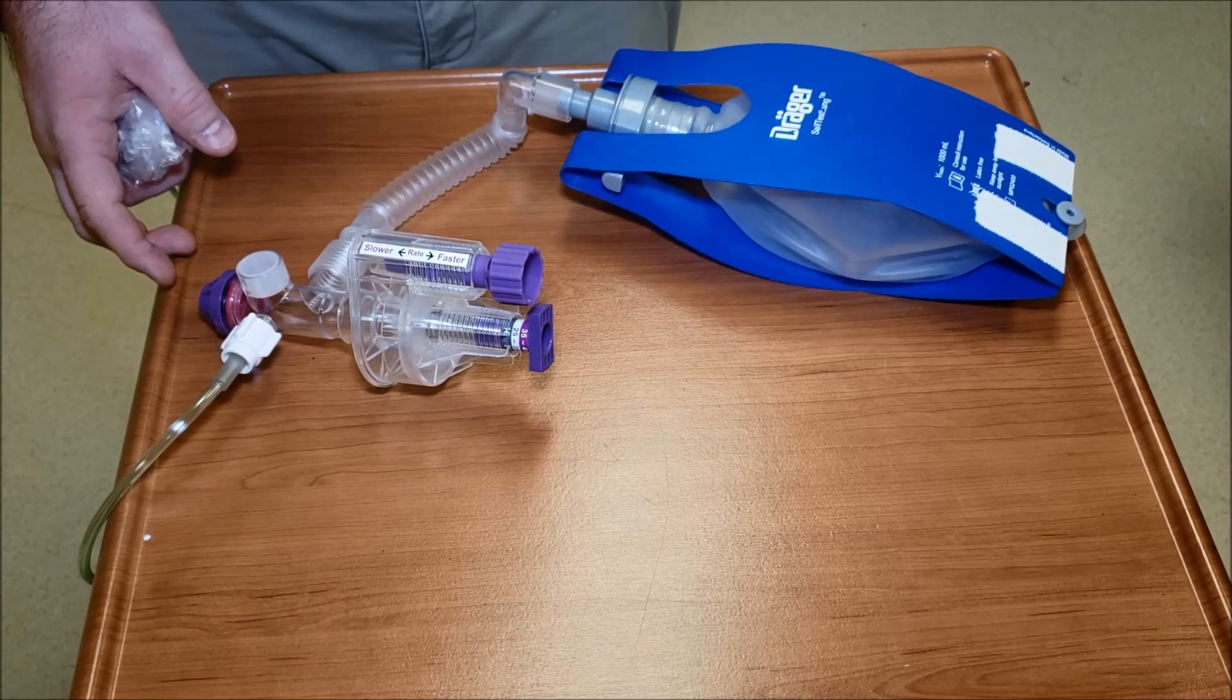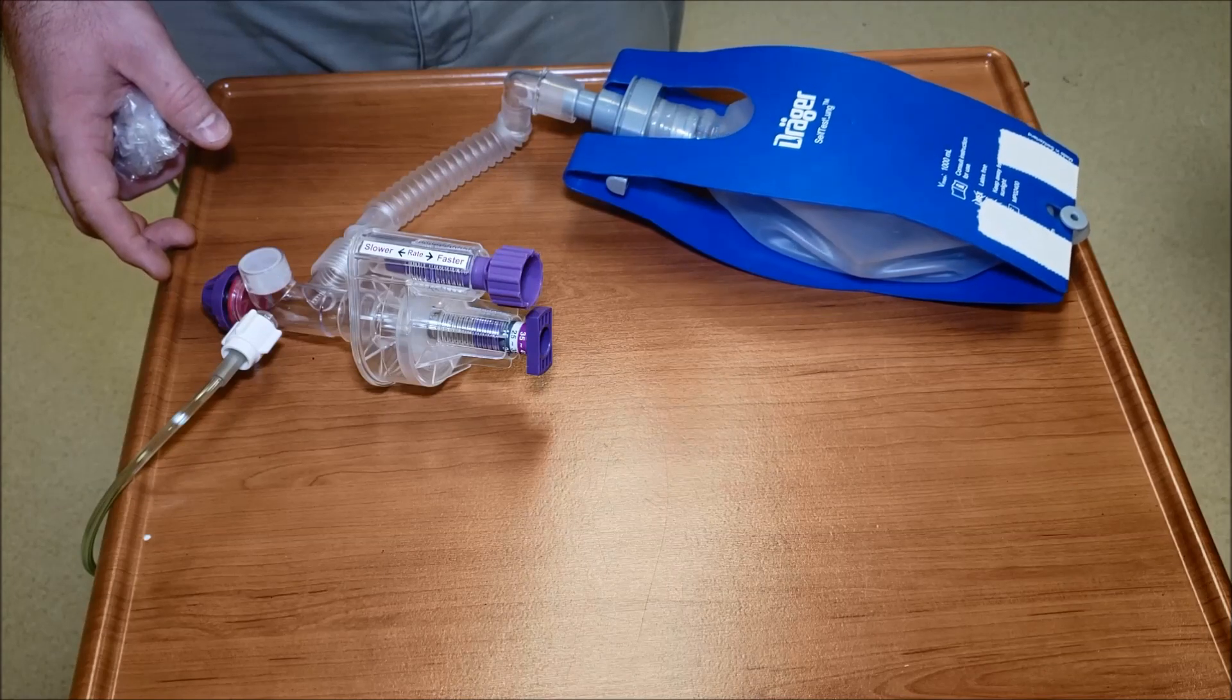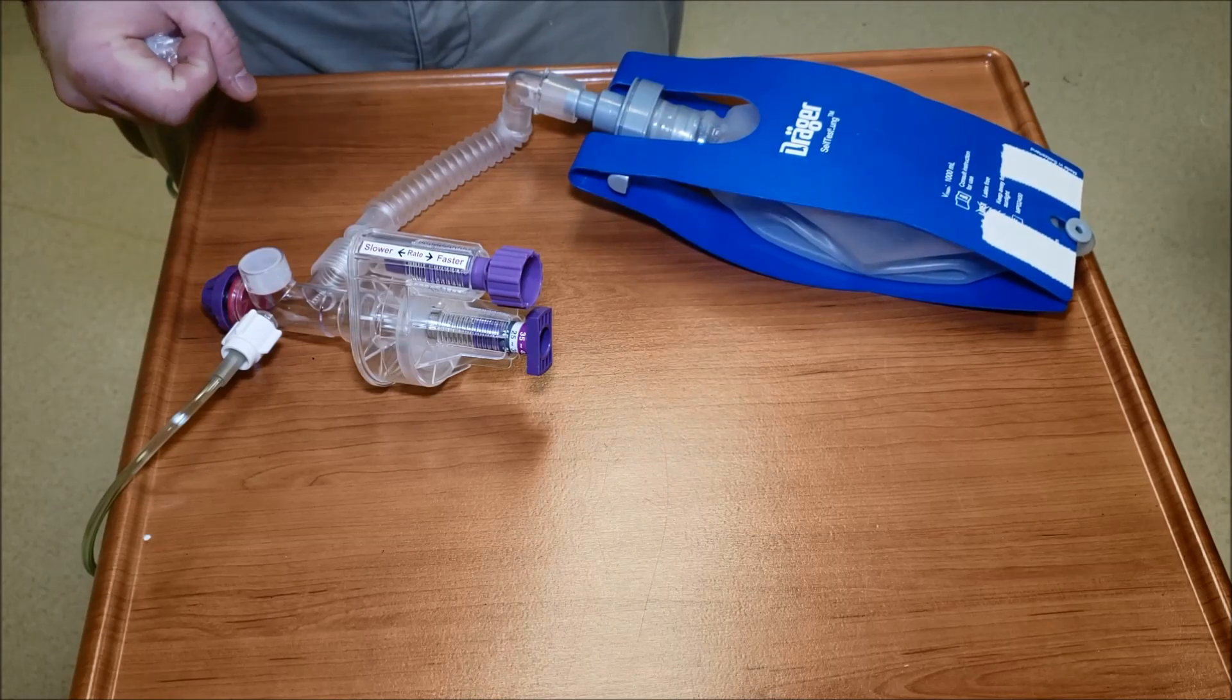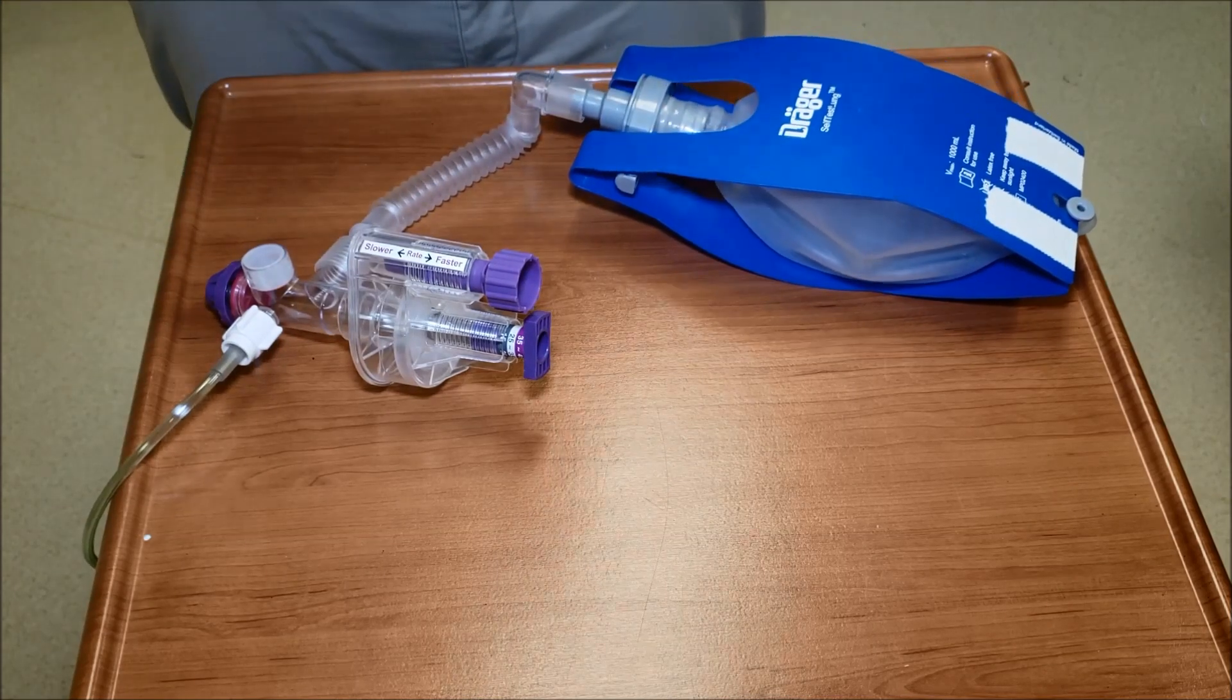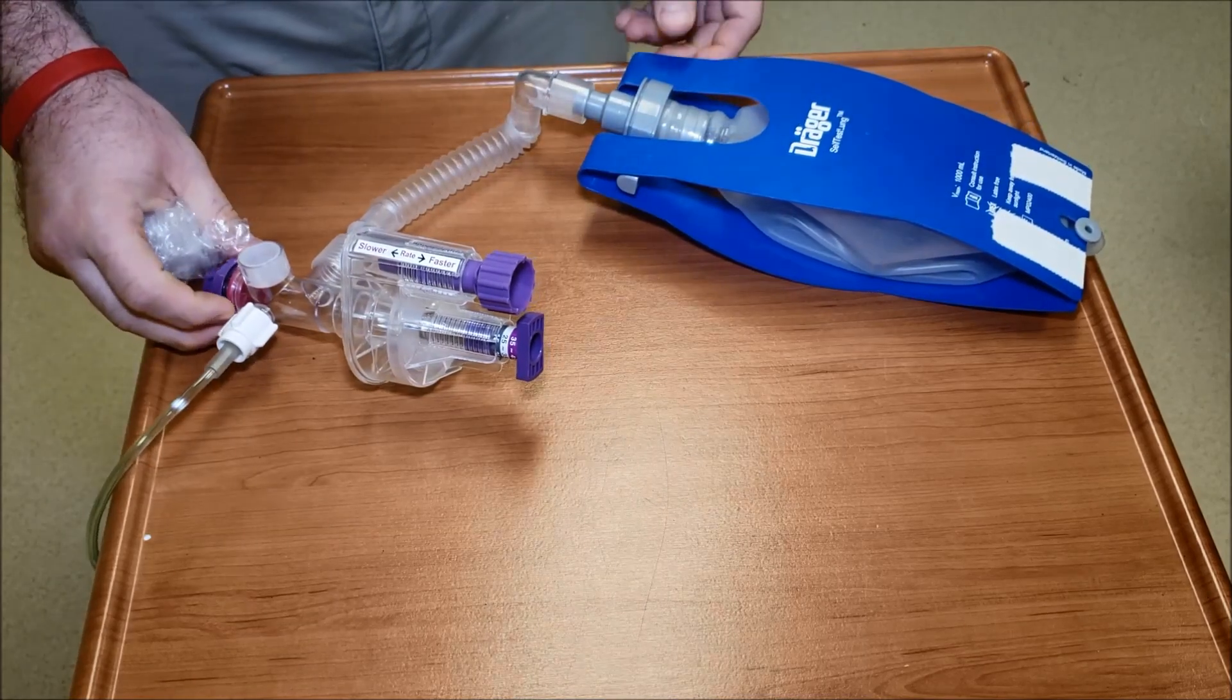This is running at 25 liters. Let's see what our rate is: one thousand one, one thousand two, one thousand three, one thousand four, one thousand five. I like it, 12 breaths per minute-ish in that area.